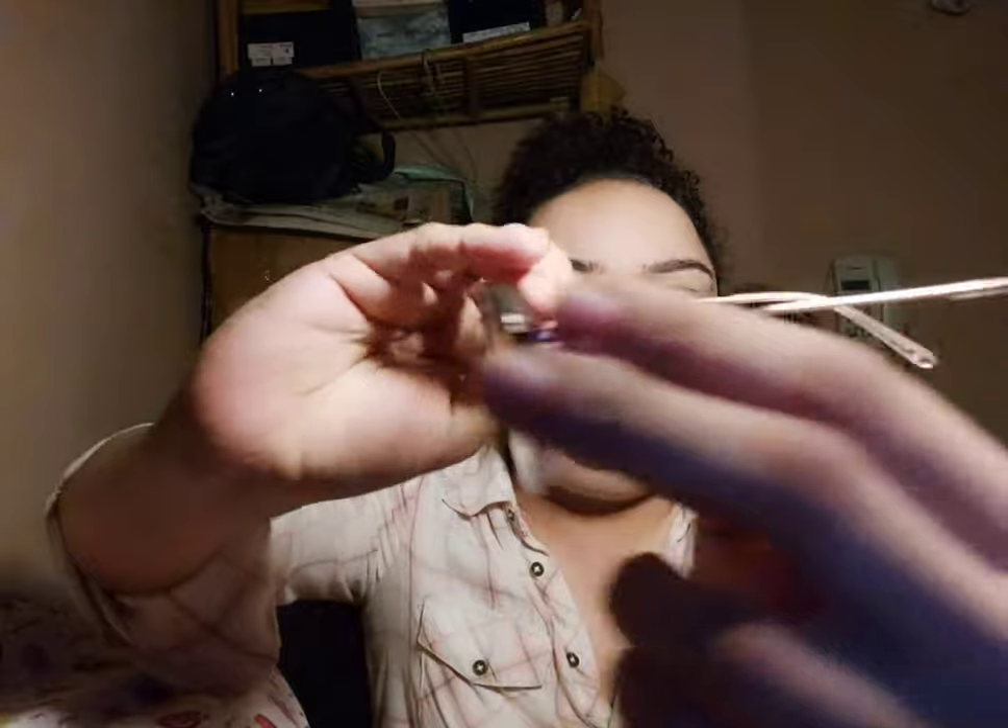This is a very nice vintage-looking eyeglass - you might say these are grandma-looking glasses, but they look really cool. They look like this. This has a full-on golden frame - I'll show you up close - full-on golden frame. The ends have a rubber-like thing which is off-white or transparent clear in color. This is great for a formal look. These are also from John Jacobs. John Jacobs has their own stores, but I prefer to get the deal from Lenskart.